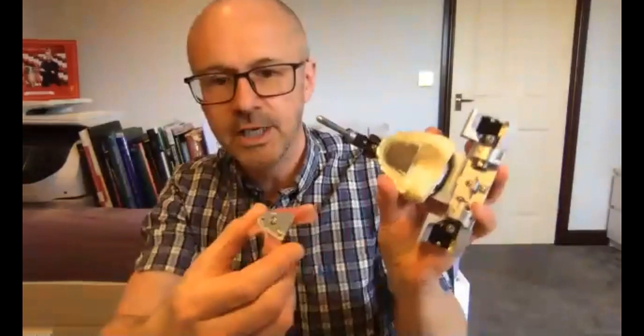On Gothic arch tracing: have a look at the documentation on the website, scroll down to the denture construction manual and look at today's talk. Talk to your technician. The Gothic arch system I use is the Swiss Gerber condylator system — you can get it direct from Switzerland. As a clinician you keep it yourself and send it to the technician, working together to get used to it.